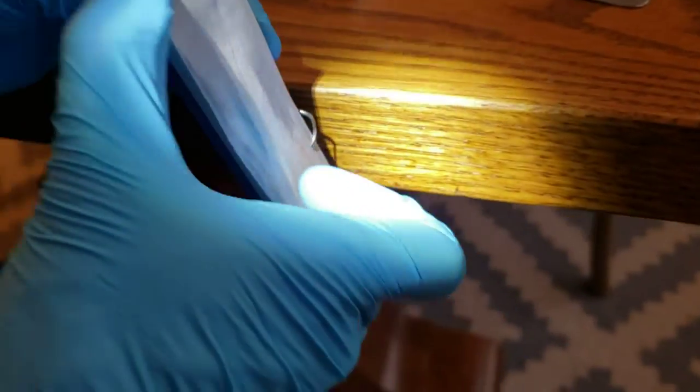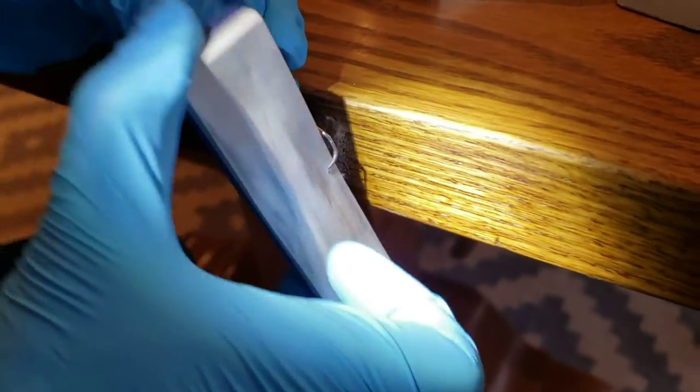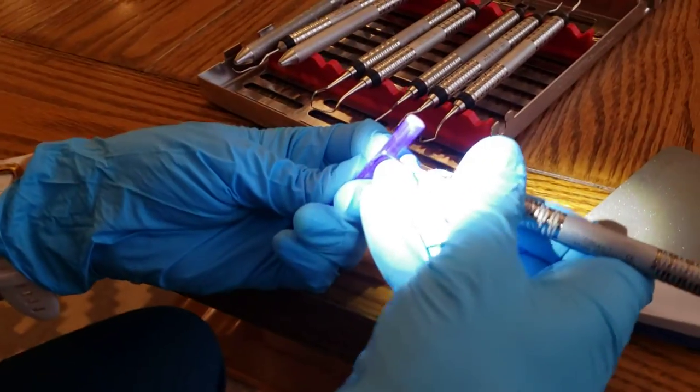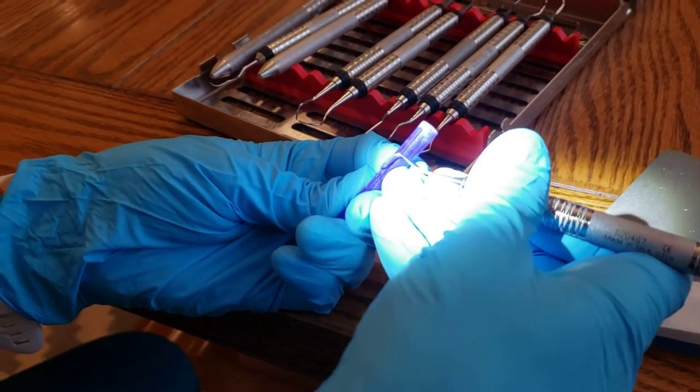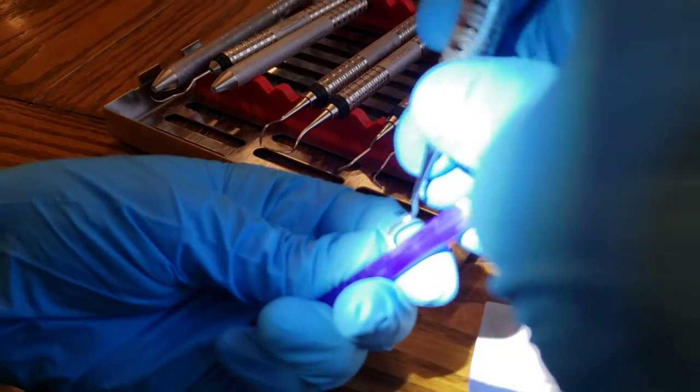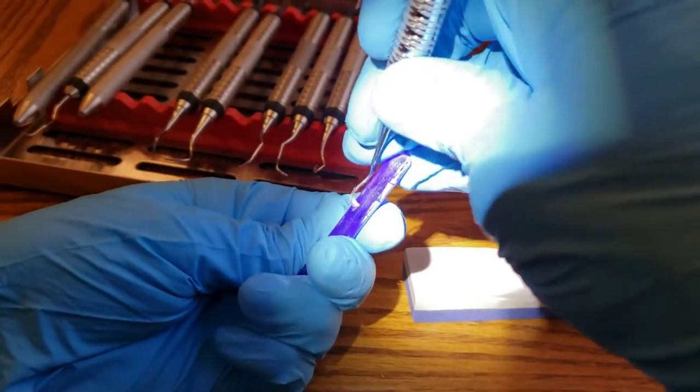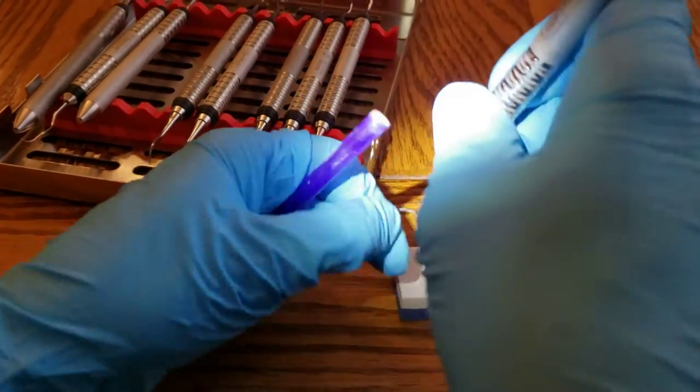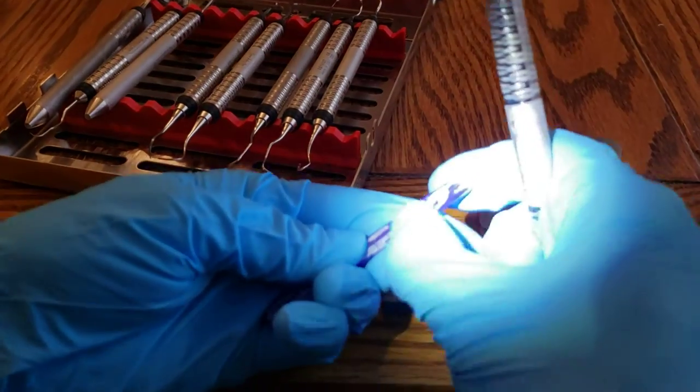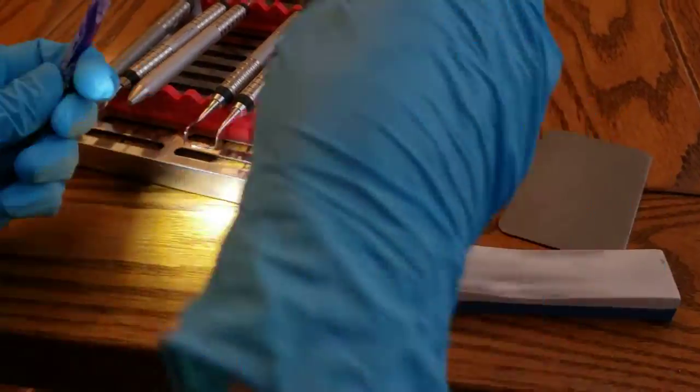And then on the other side, since it's a universal, we're going to go on the other side as well. So when you go to check it, you're going to hold it just as you would to use it. So again, the terminal shank is perpendicular, I mean parallel to what this would be considered the long axis. You can see my stick's gotten kind of, that's what happens when it gets autoclaved a few times.